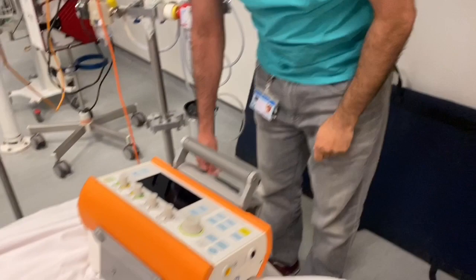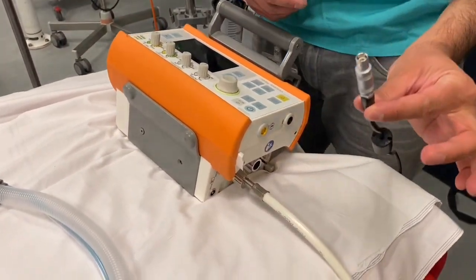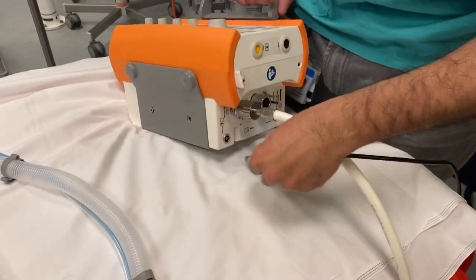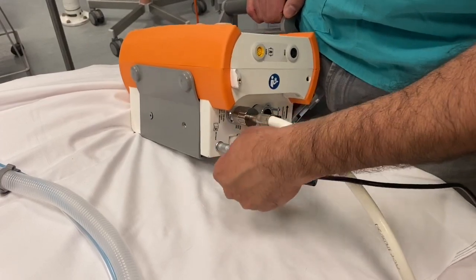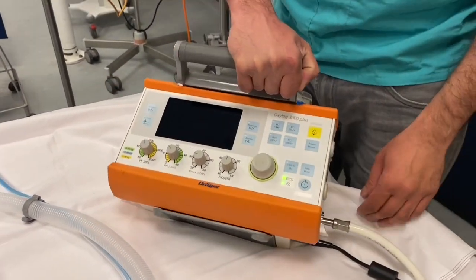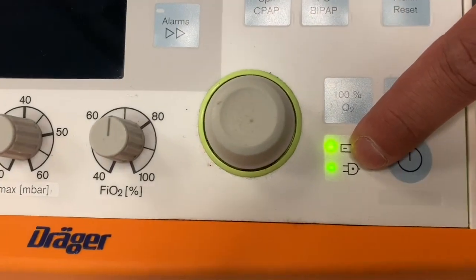Once that's in, we're going to connect it to the power supply in the wall. This is the power cable and it slots very nicely into the DC input hole like so. You should then see that both of these lights go green.